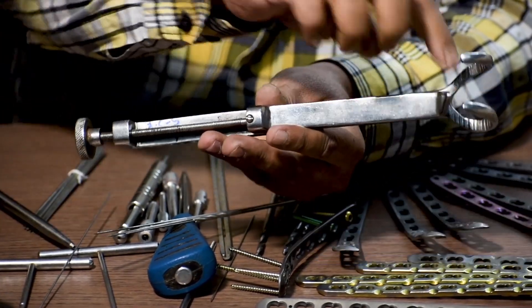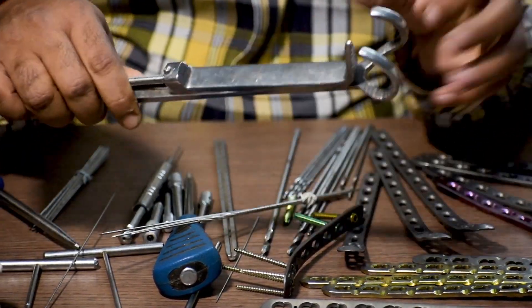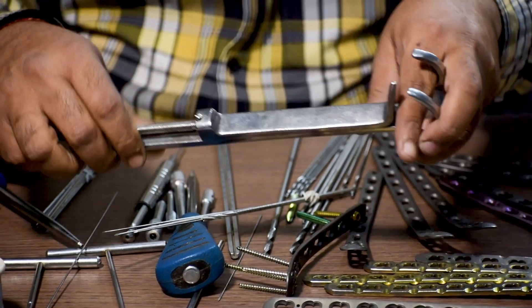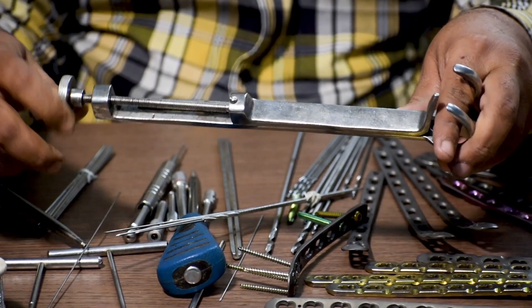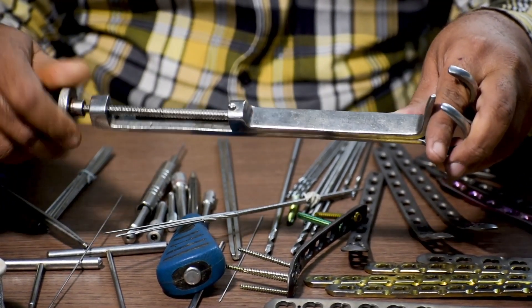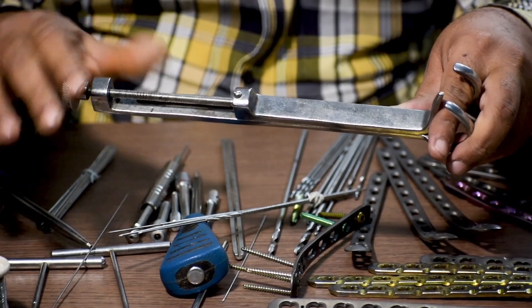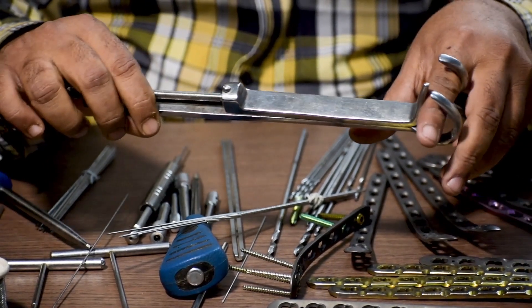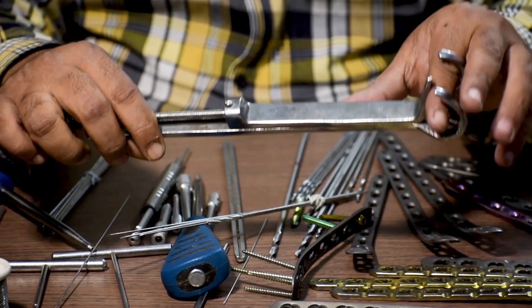When you rotate this end of the Lowman's clamp, it gets loosened. If we consider this finger as a bone and start tightening it, as you can see, this will not allow the bone to move much.